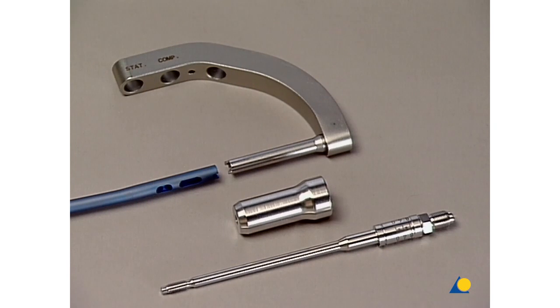The compression device allows controlled compression of the two fragments in order to eliminate an existing fracture gap.